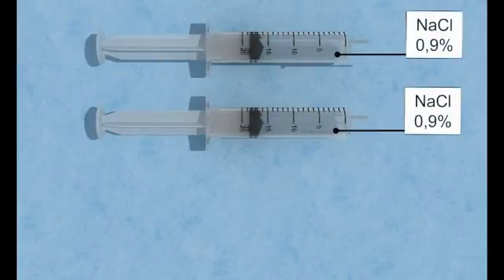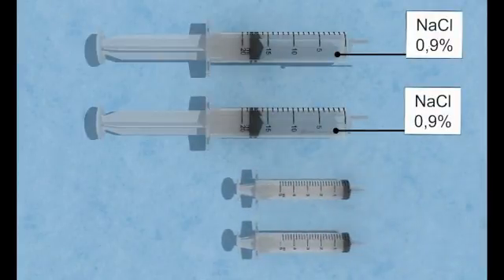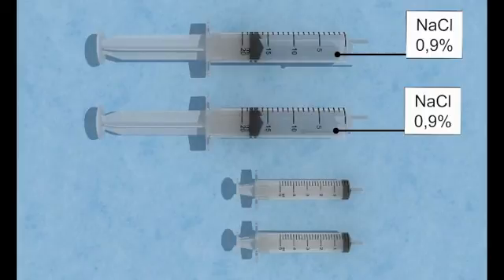Two 20ml syringes filled with a sterile 0.9% saline solution. Two empty 5ml syringes for the aspiration of the former used CitroLock. The procedure should be performed using an aseptic technique.